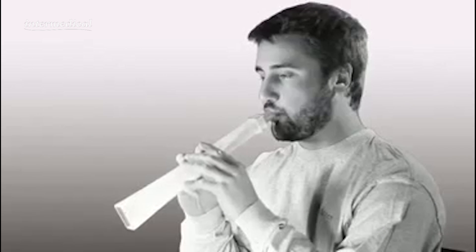Depending on your condition, you may want to perform only a few repetitions of two blows one or two times daily until you are able to do more.